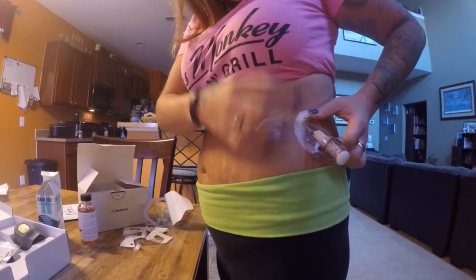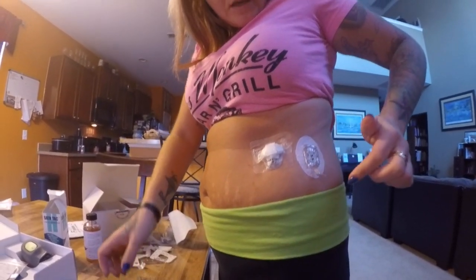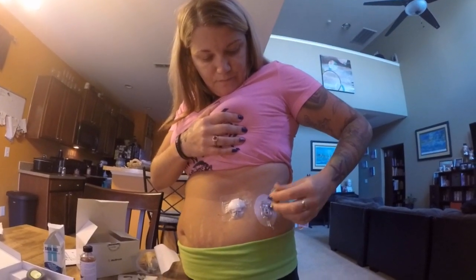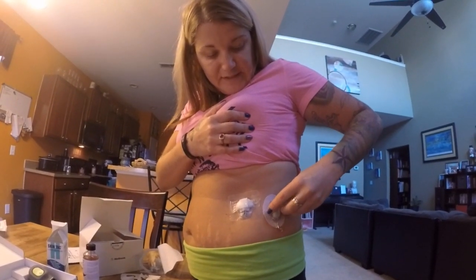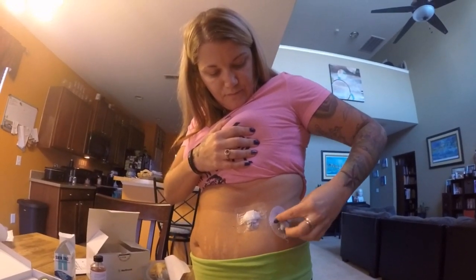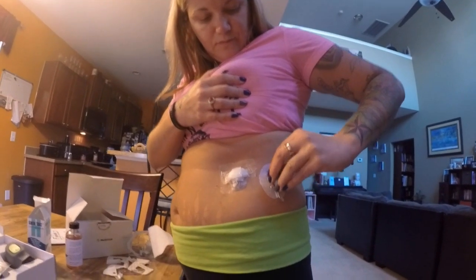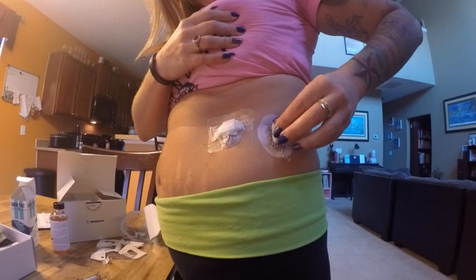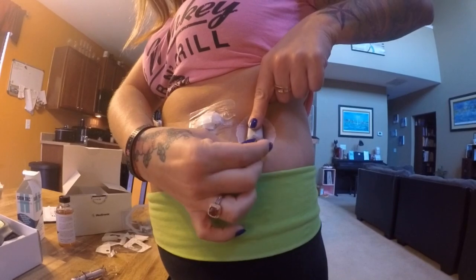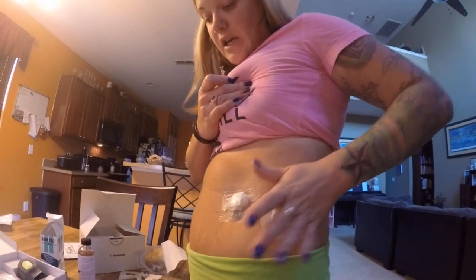You rock it back and forth, squeeze those two buttons, rock back and forth, then put the transmitter in — small side in first. Use the tool to squeeze it to two clicks, twist, and it comes off. That's inserted and you're good to go.